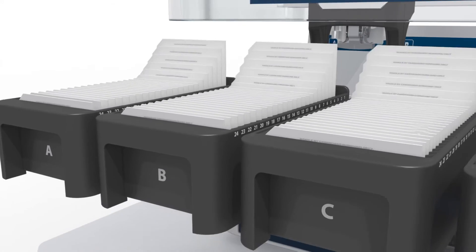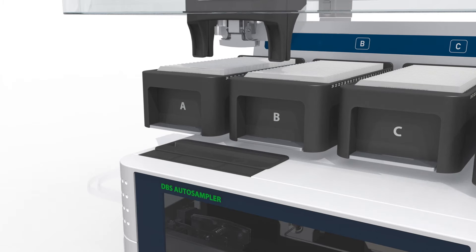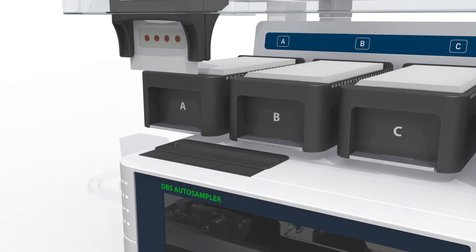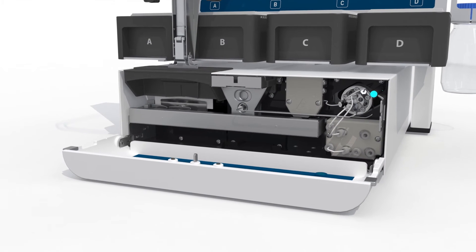A card-handling robot with expandable capacity, ranging up to several hundred cards, picks up a card from the tray, placing it in front of the camera via the entrance slot.